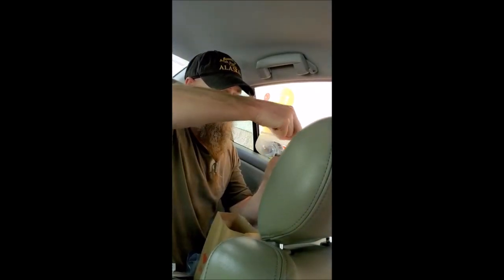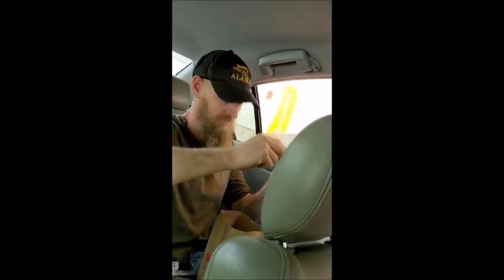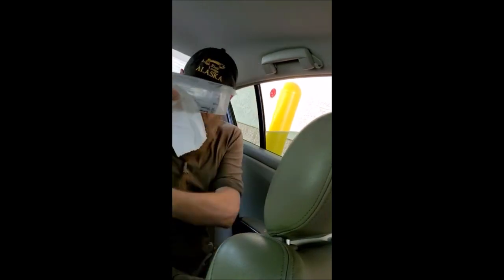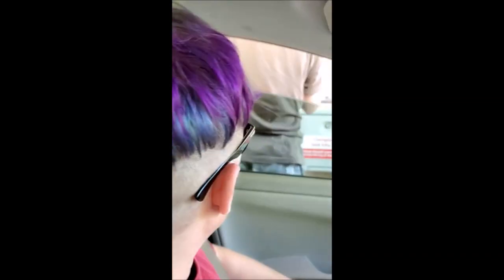The next thing you're going to need out of the bag is just a little wipe inside there. Once you put it inside the container over here, you're going to wipe it down. The last few things are zip locks for the trash, and the paperwork in there is just for your results. Yeah, you wipe the container after you're done putting it in — you put that in there then you wipe it down.